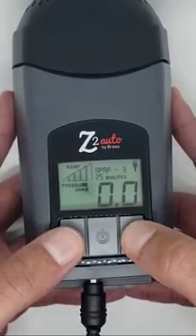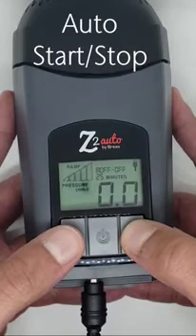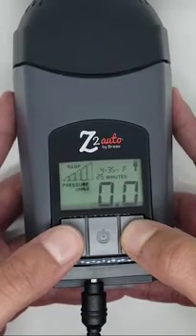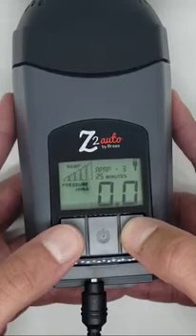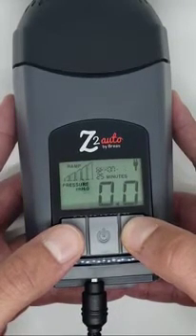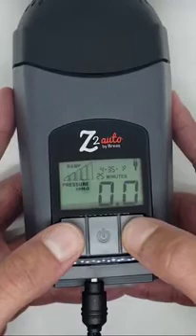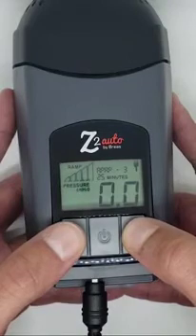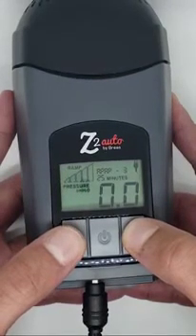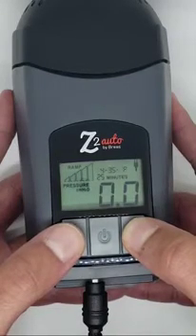Finally, we are going to change the auto start-stop feature, which is only available in a Z2 auto CPAP. The Z2 CPAP that is a base unit has an auto stop feature, not an auto start-stop feature. This feature is enabled or disabled in the same way. The auto start-stop feature makes it so the patient does not have to push the power button to start treatment. All they have to do is put on their mask and begin breathing, and the Z2 device will turn on. Once they take the mask off, the device will turn off. This is the only difference in patient comfort settings between a Z1 and a Z2 because it is not available with the Z1.